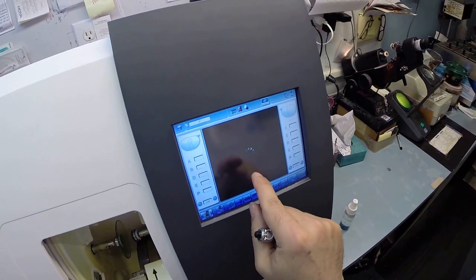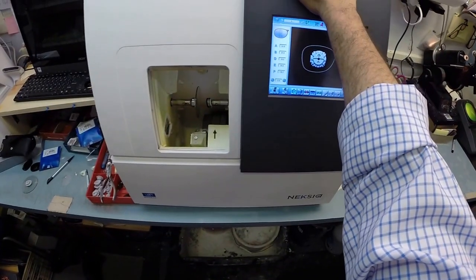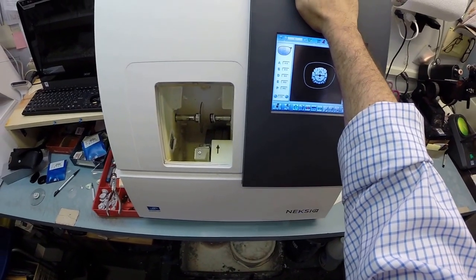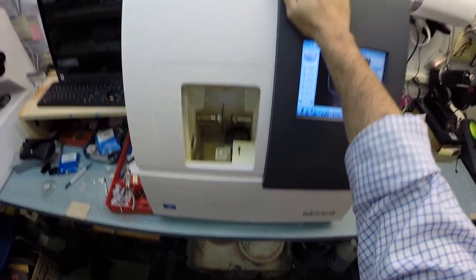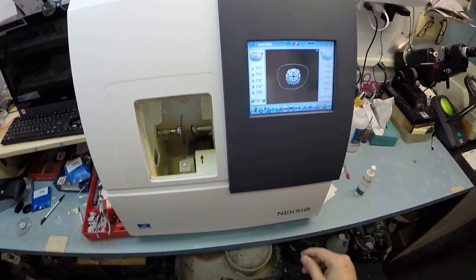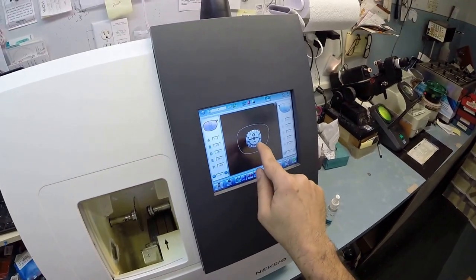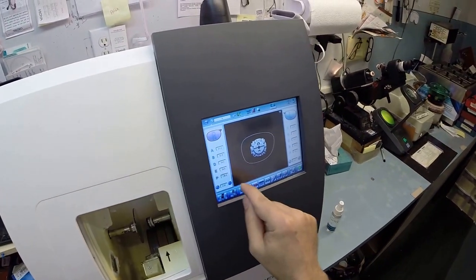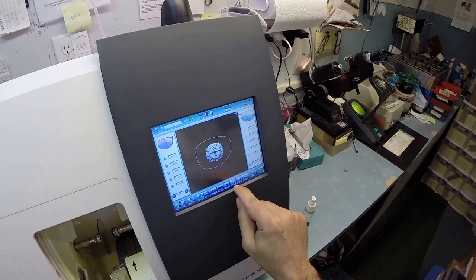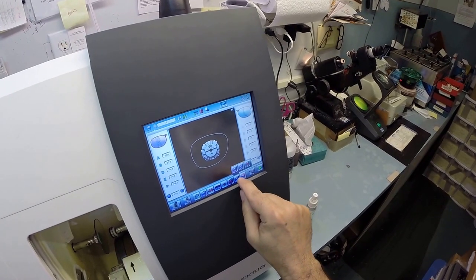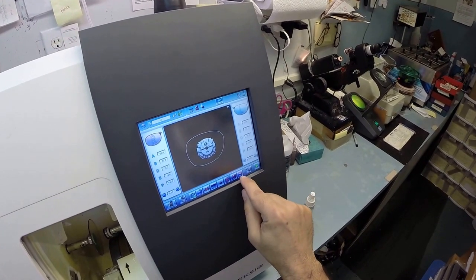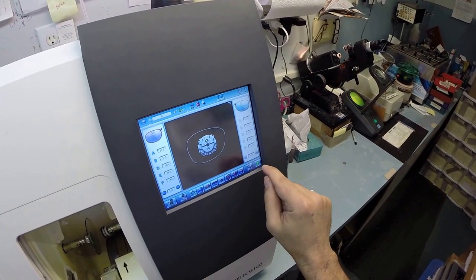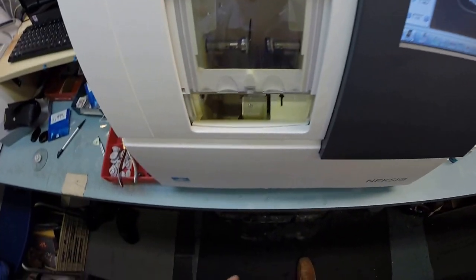I'm going to pull the shape up onto the lens. By the way, this edger costs forty thousand dollars. It weighs two hundred pounds. I recommend everyone go out and buy one, put it on your kitchen counter, and then you won't need me anymore. You can cut your own lenses. So that is the shape of the lens. I'm not going to polish the edges. I am not going to put a bevel on the front surface of the lens, only the back surface. I'm going to hit start.